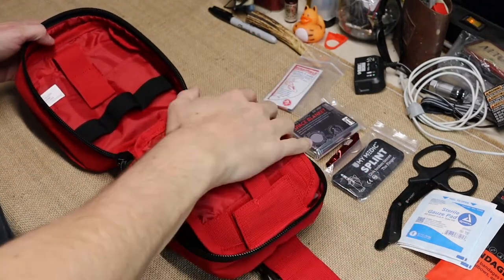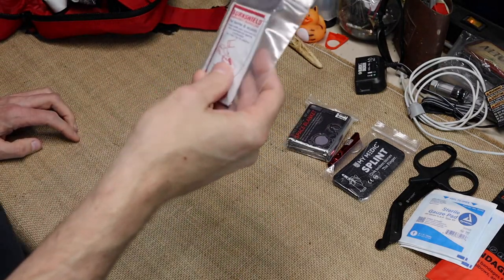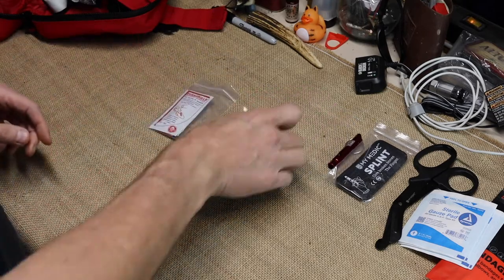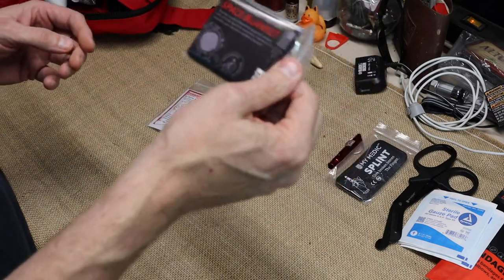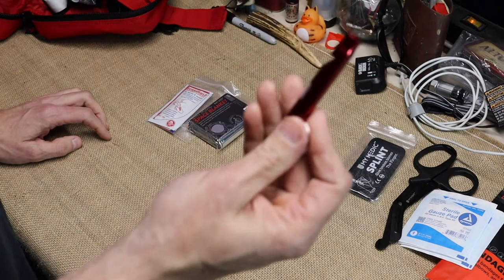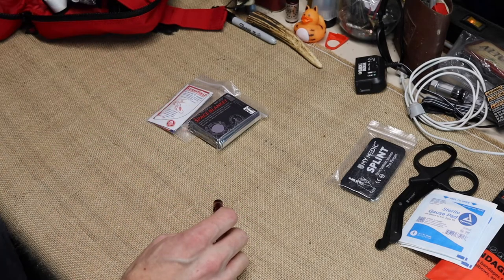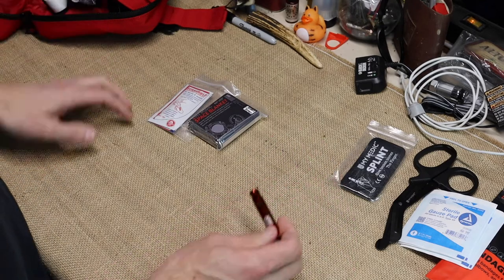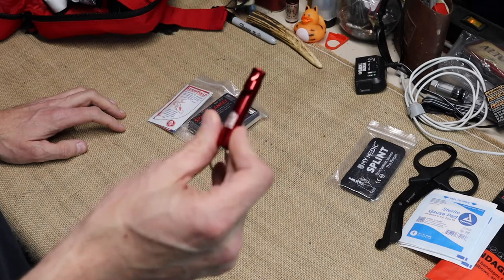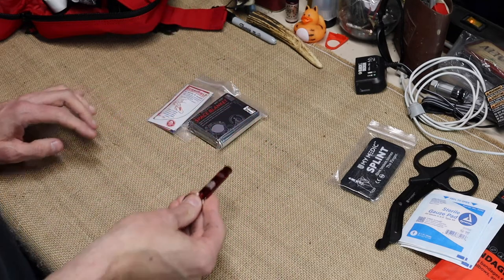In the top section, first off you have your burn shield — a cream you put over a burn to help keep it clean and prevent infection. There's a space blanket, which is good for temporary use. There's a whistle for signaling help. I've talked about this before — I have a 105 dB alarm on my daypack. A whistle or alarm is going to be heard way before your voice, and you can only yell for so long before running out of energy.